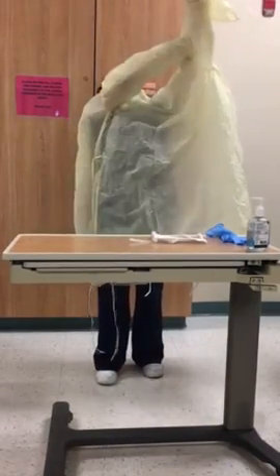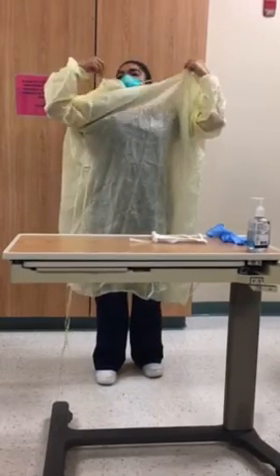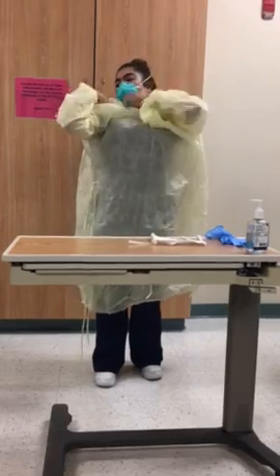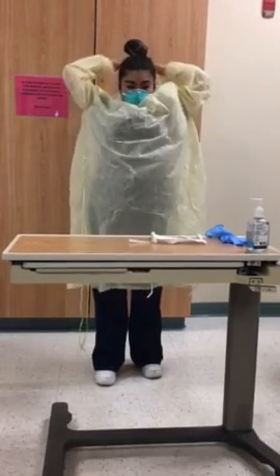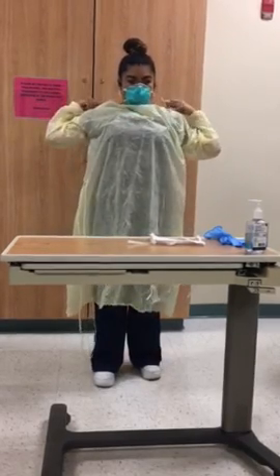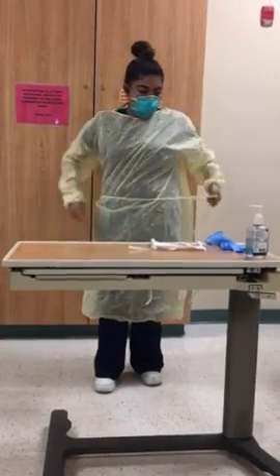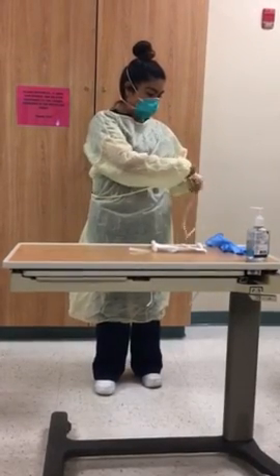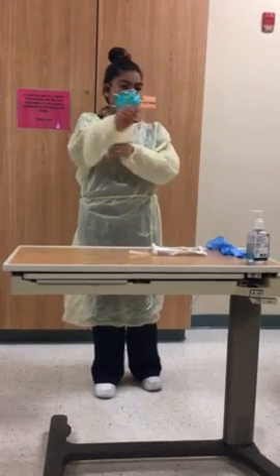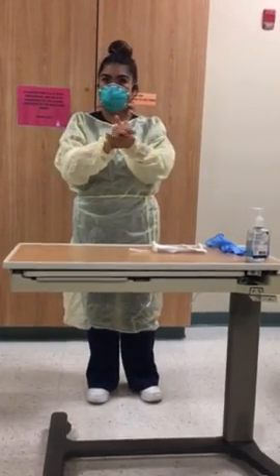I'm going to go ahead and place my gown on. Bear with me here. I'm going to tie it. Tie this around. Okay, just there. And then we're going to wash our hands, 15 to 20 seconds.